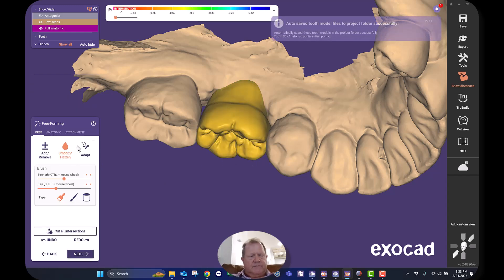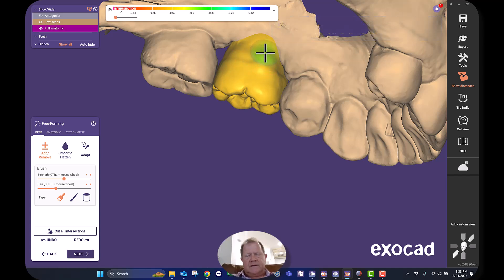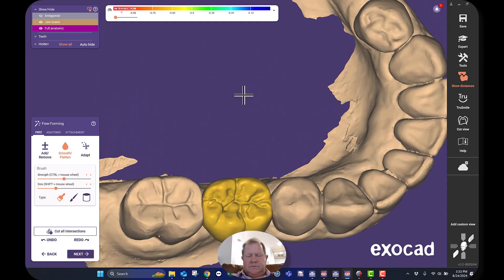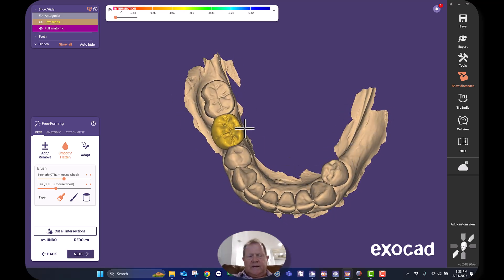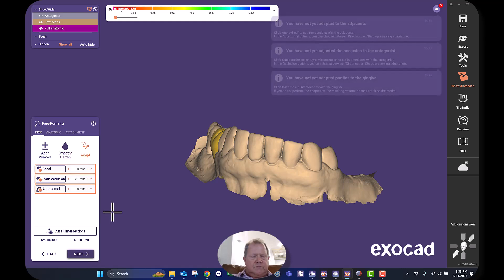You can play with this as much as you want, but for purposes of making a temporary, it doesn't have to be anything crazy fancy. I'll hit next, and it'll take me to free-forming where I can fill this in a little bit — add a little wax right there, smooth that down. This is probably perfectly adequate for fabricating a temporary. I can print this model, my assistants will make me a PVS shim, prepare it for the day of prepping, we'll prep the adjacent teeth, pop in a provisional, make my impressions, and be in and out quickly.